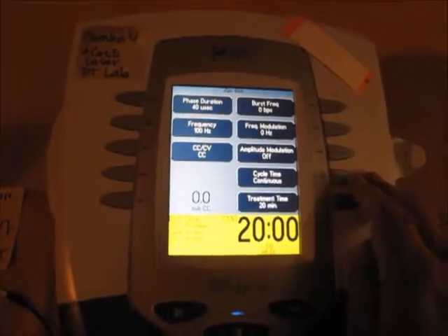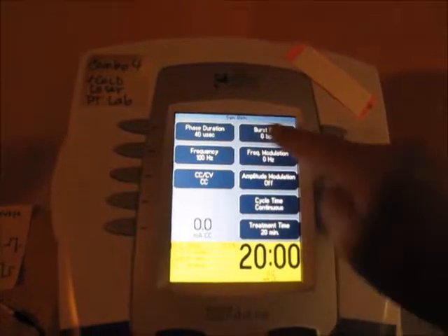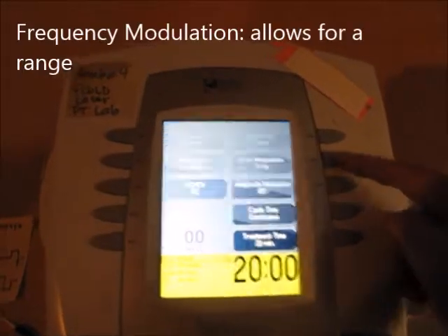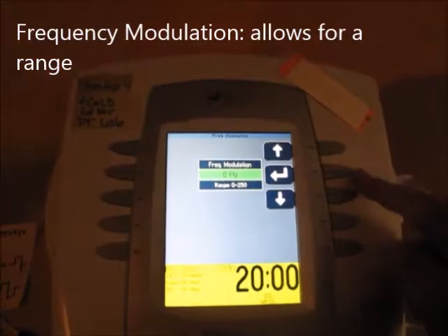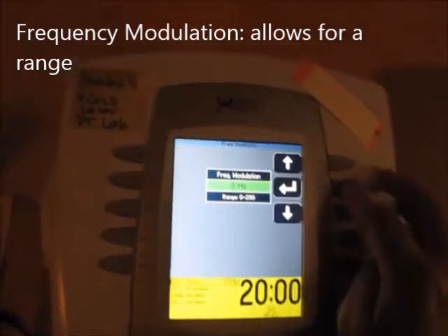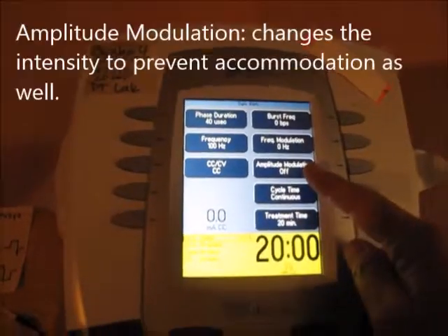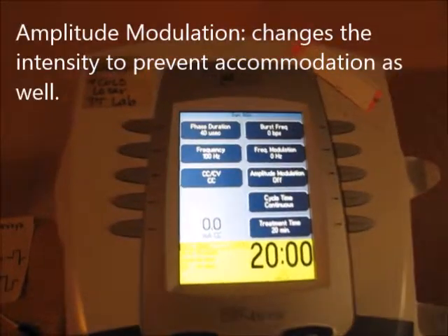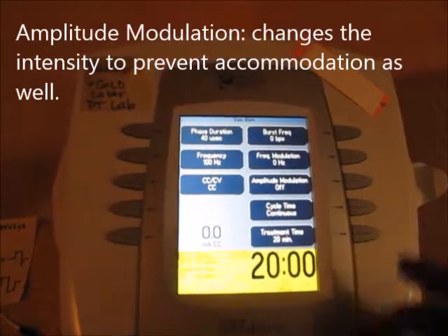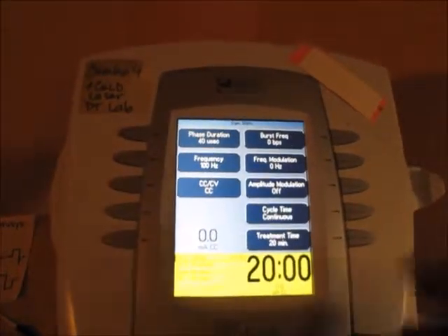Hz, by the way, is the same as cycles per second. There is no burst setting because we are doing conventional TENS. Frequency modulation lets you set how high and low the frequency can go so the person doesn't accommodate. Amplitude modulation is like the vector scan of interferential — it goes up and down in amplitude so the person can't quite locate the tingling.